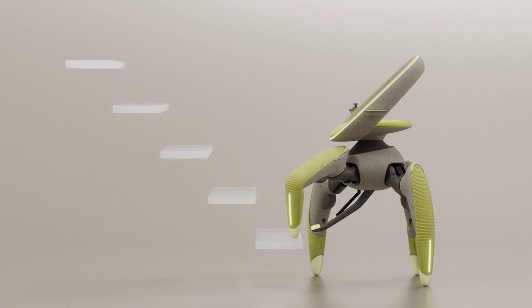Toyota's engineers based the design on observations of how people naturally navigate stairs and adjust their balance while moving. The WalkMe showcases a promising future where technology actively supports greater accessibility and mobility.